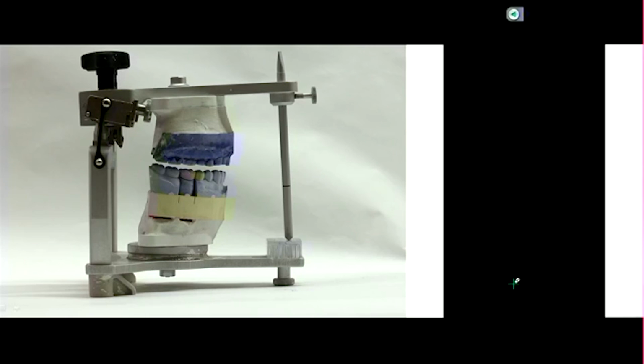So it's your excursive movements that could be compromised in a situation where you haven't done this. At some point, there's a cost benefit. The theory is if you don't do all this sophisticated mounting, your crown design may not be as accurate as it needs to be for no adjustments. But you've got to think, if I need to do a little adjustment, it just takes a few seconds to zip, zip, zip, and it's adjusted.